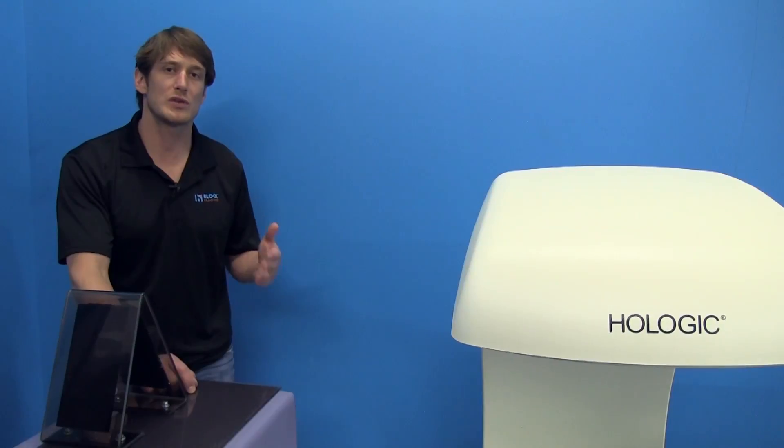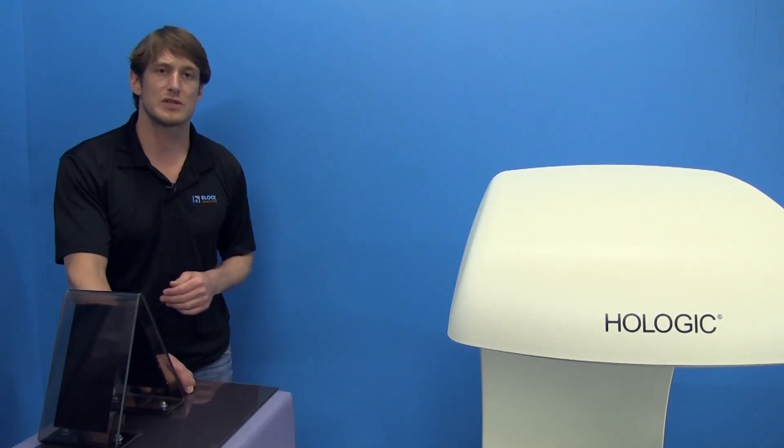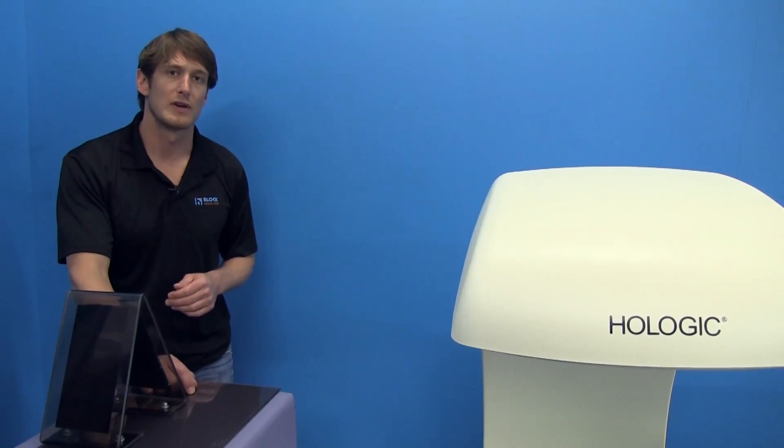Here to show you how to find your manufactured date, your serial number, and also the model of Hologic QDR system that you have.